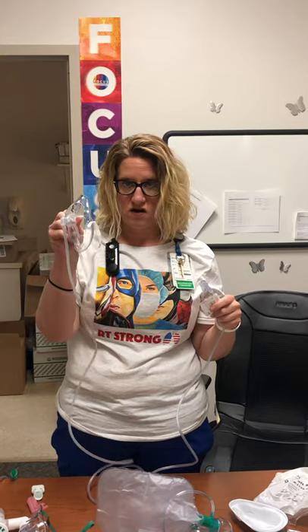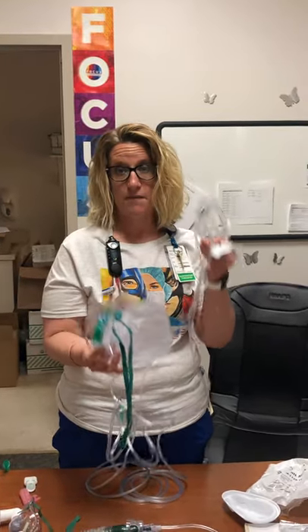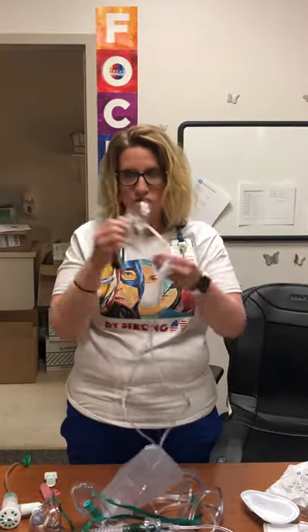This is the mask you're probably going to see most often. It gives up to 90% FiO2. There's not a lot of patients where the non-rebreather works but the Oxymask doesn't, because there's only a 10% oxygen difference. A lot of times if this doesn't work, we go to a high-flow nasal cannula or BiPAP. But there is a certain percentage where patients can't get their oxygen up on the Oxymask and do come up on the non-rebreather. We are currently seeing more escalation with the COVID situation, but typically patients do fine just on this.